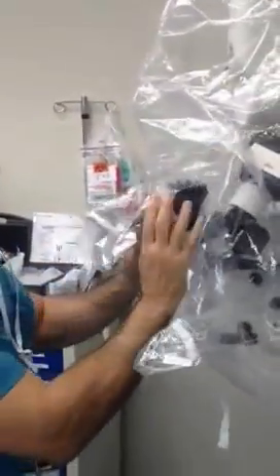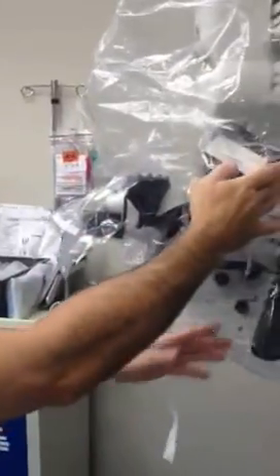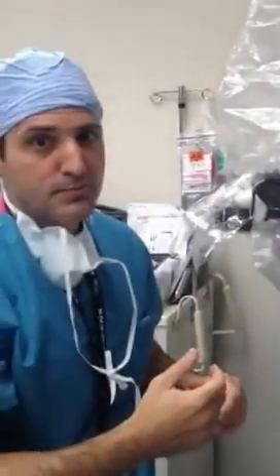Then, just very simple, the ears go right where they should be on the microscope. There's one extra ear there and there. That's how you put it on the microscope. Thank you.